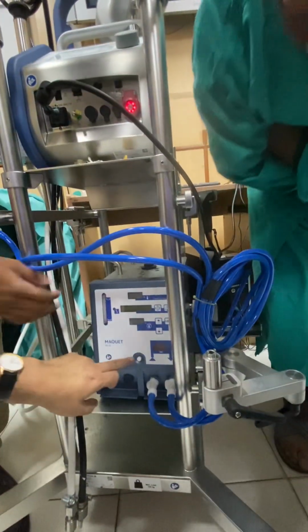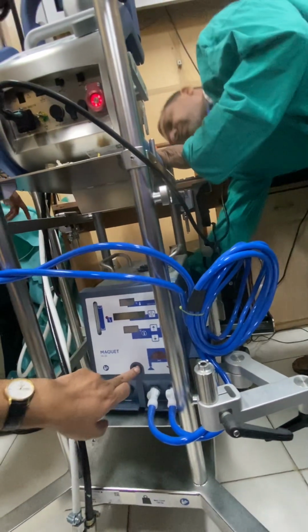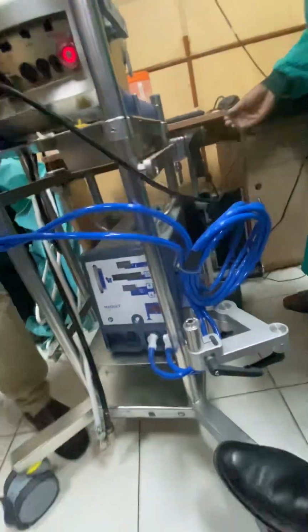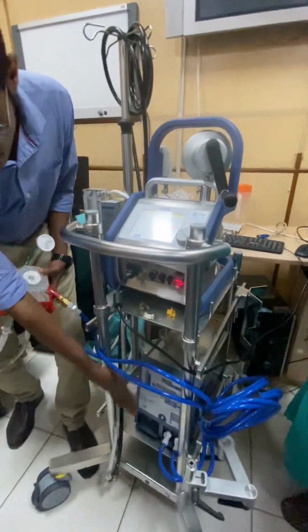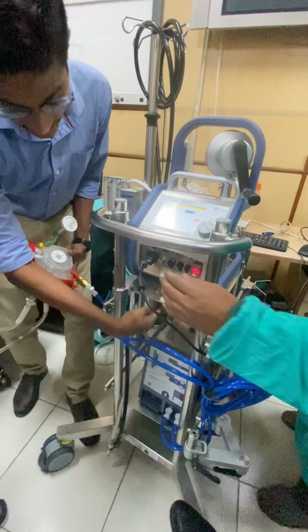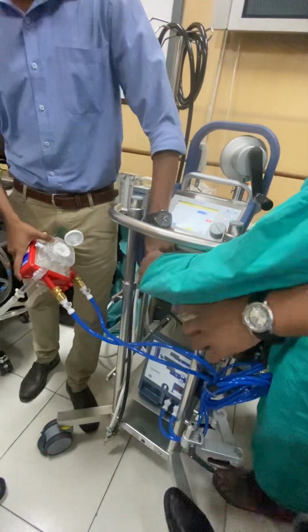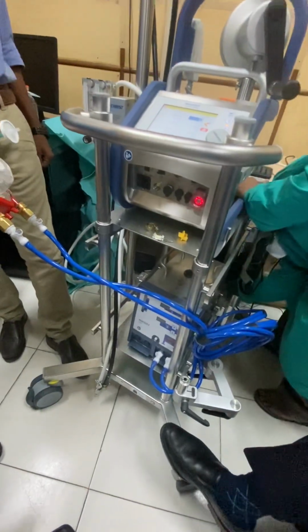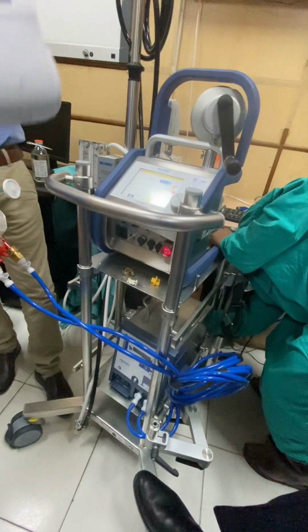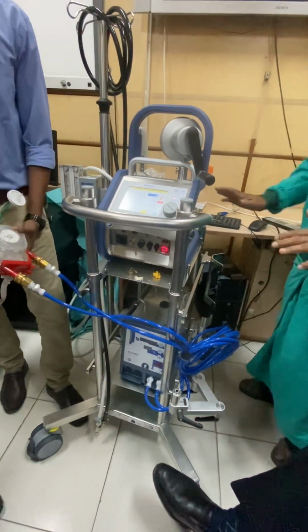Why is this not turning on? Maybe the power supply. One more cable we have. Yes, you have it. They have connected the supply. Sir, this is for the device. This will have a separate connection. Where is the cable? I think it is the demo battery piece; there should be two. They had only one, only one is kept here.